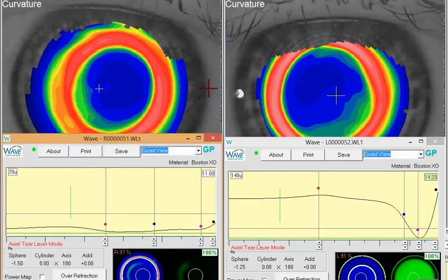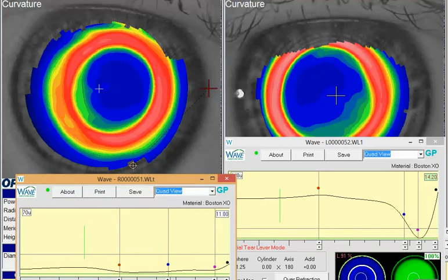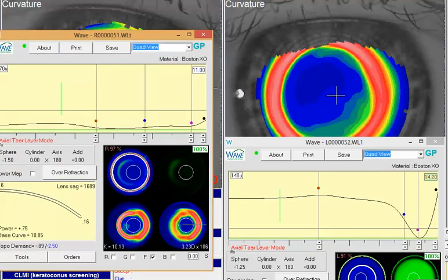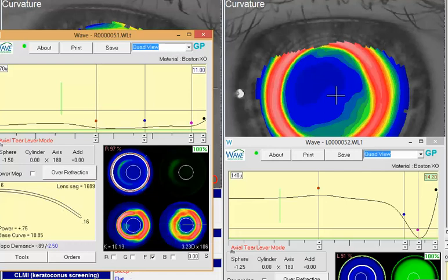So if you look, I put together a possible option here. I basically went to about an 11-millimeter diameter lens and set my anchor points. Looking at this topography, I tried to mimic that steep zone of the cornea to go right over the top of it and see if you can get this lens to fit nicely. Since you have a decentered optical zone, you'll end up with a little different zone on this left side. For simplicity, I went to a free-form design because it was a little decentered, and then just picked a nice arbitrary position there.